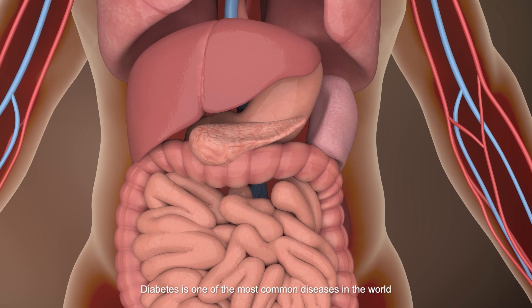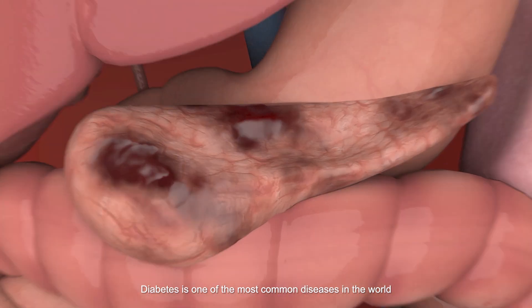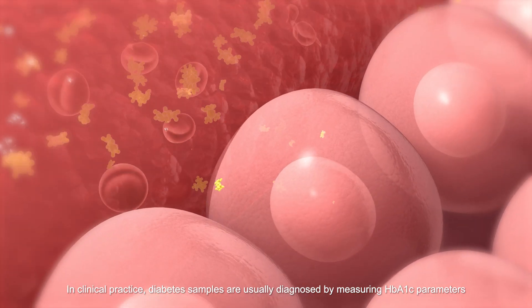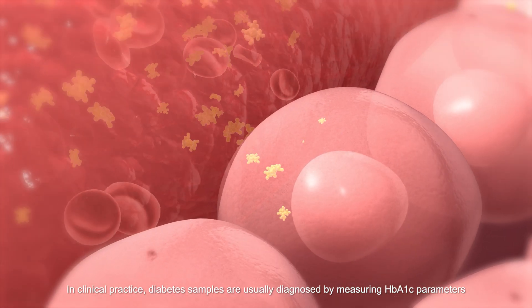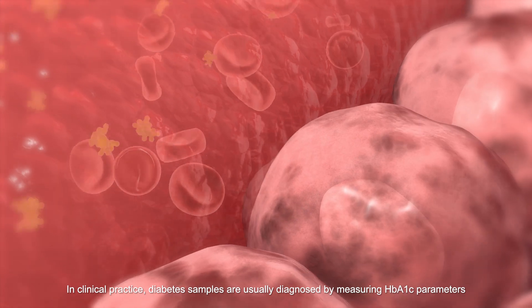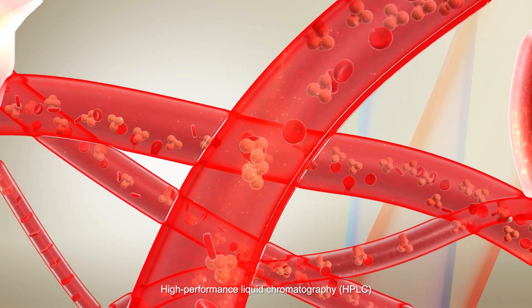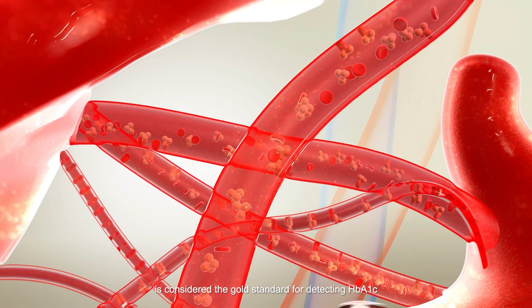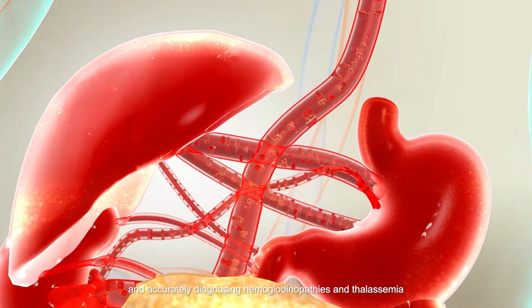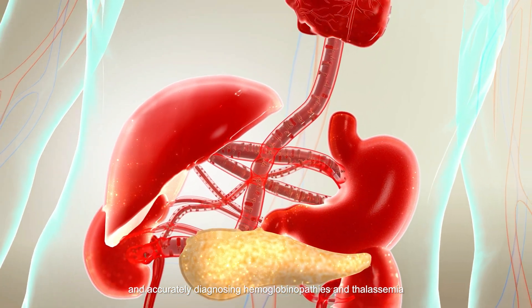Diabetes is one of the most common diseases in the world. In clinical practice, diabetes samples are usually diagnosed by measuring HbA1c parameters. High-performance liquid chromatography is considered the gold standard for detecting HbA1c and accurately diagnosing hemoglobin variants and thalassemia.